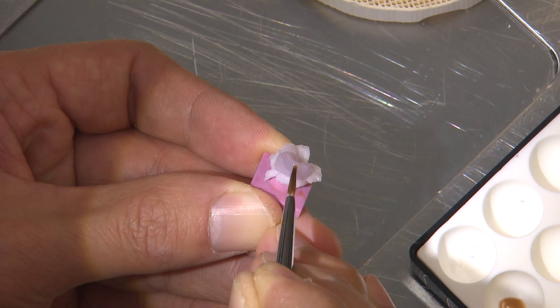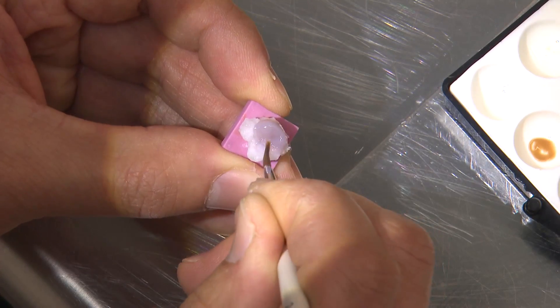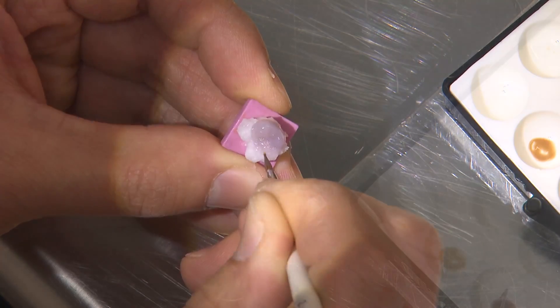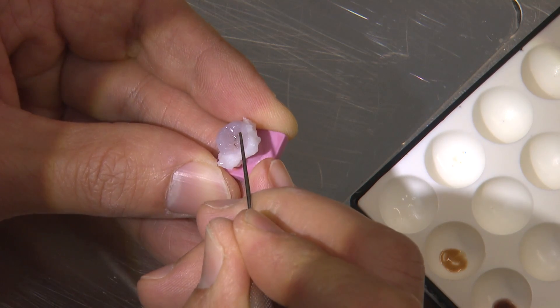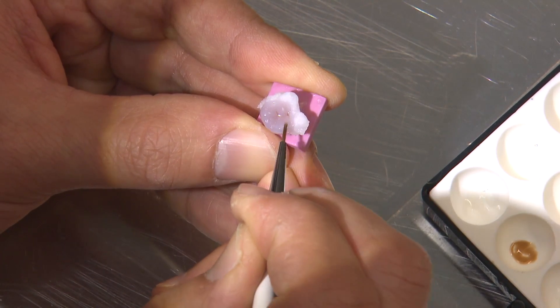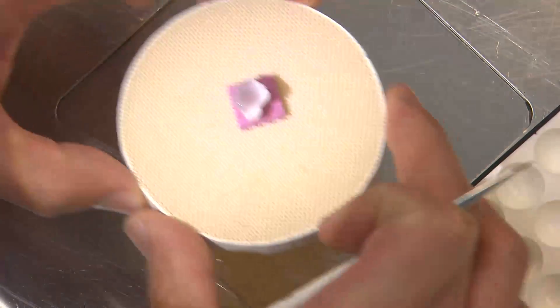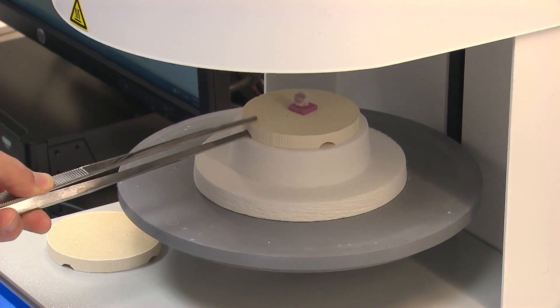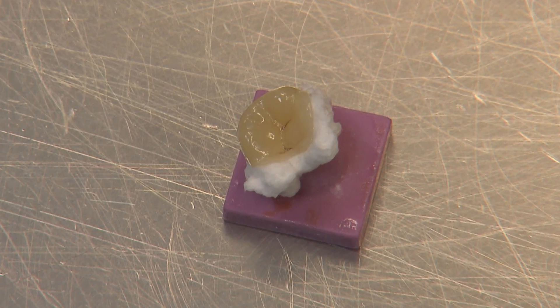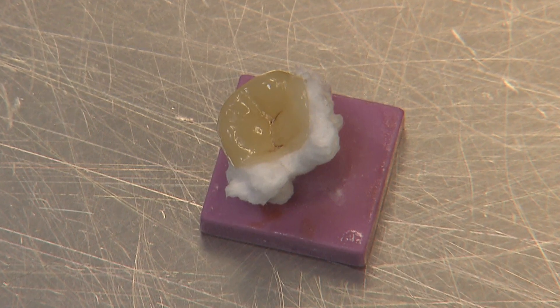During the heating cycle in the oven, the super peg material helps prevent any dimensional shrinkage or changes to the restoration. I'm placing a very thin layer of glaze material onto the restoration, which will give a very nice luster once fired and also helps seal any potential microfractures. I add stains into the primary anatomy — a little mahogany to create depth in those grooves, and some white onto the cusp tips and marginal ridges to add value. It's then placed into the porcelain furnace. After about a 20-minute cycle, the restoration is completed, crystallized, stained, and glazed.